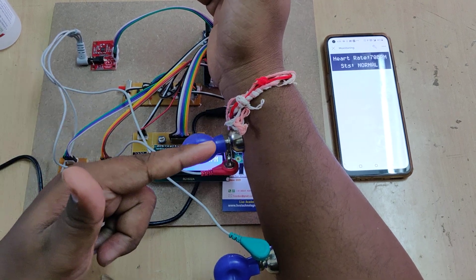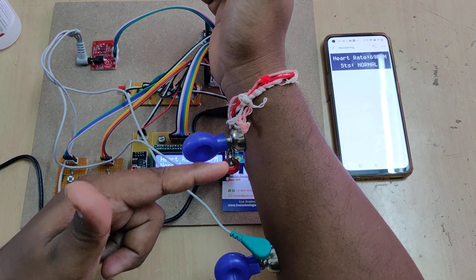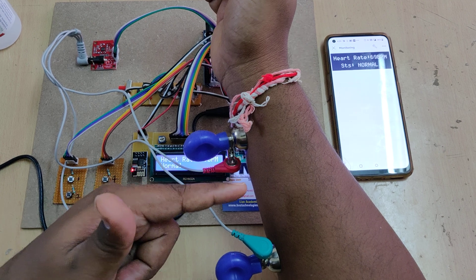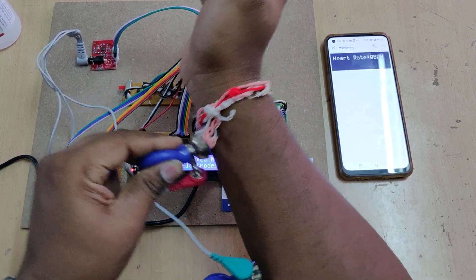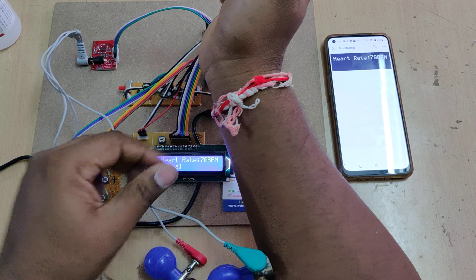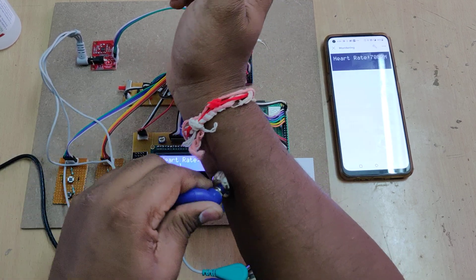You are getting a normal reading. When you get an abnormal heart rate, then automatically it will display the abnormal heart rate. If you are keeping the electrode like this, there is a chance to get an abnormal heart rate.